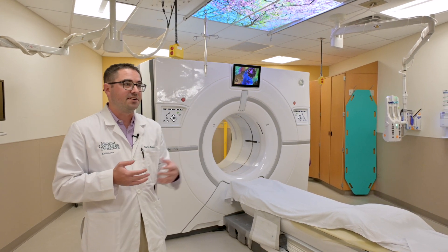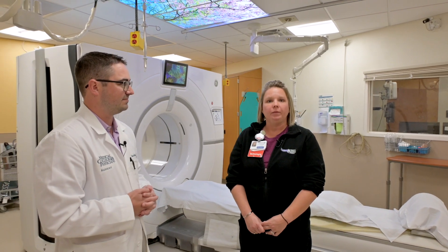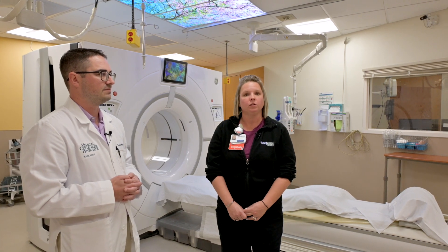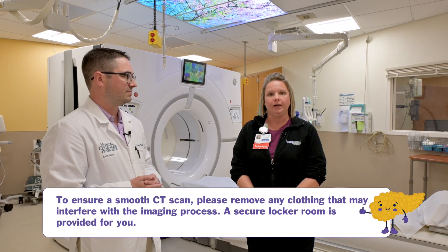I have Kathy here, one of our technologists in the CT department, to go over what a patient can typically expect on the day of scanning — from walking in the door to arriving at the imaging department. A typical patient will come in, check in, receive a gown at the check-in desk, go to a change room, and change into their gown. We do want them to remove all articles of clothing with metal on them.